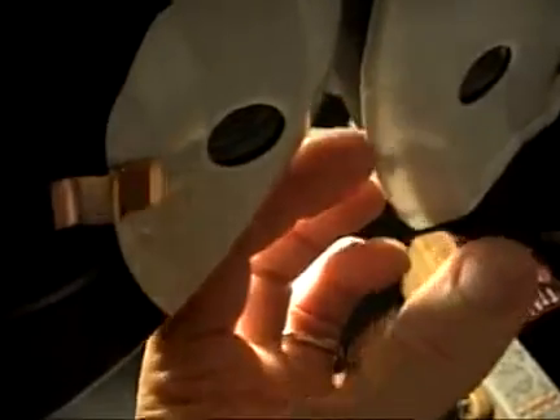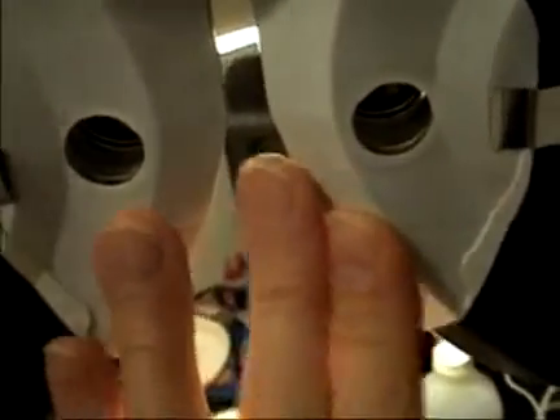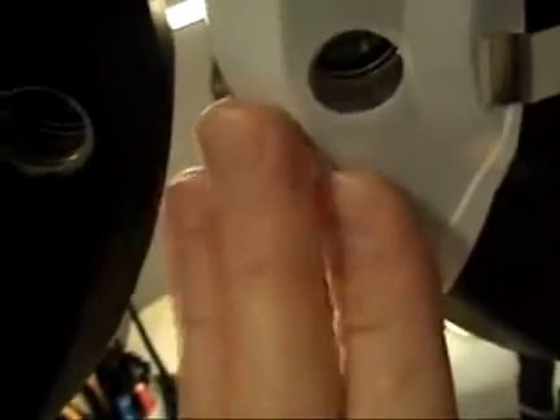What seemed like about 15 to 18 years ago, face shields no longer worked as consistently. Once put in place they look okay, but they no longer fit around the edges — there's a large gap around the front of the face shield. More importantly, when the patient's face was up against the Phoropter, there would be more shifting of the face shield and it would more easily shift out of place or actually dislodge.